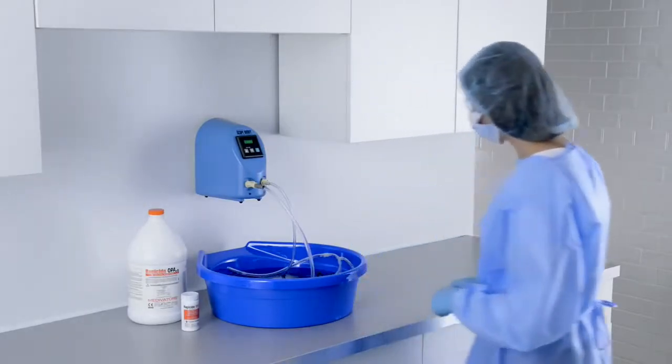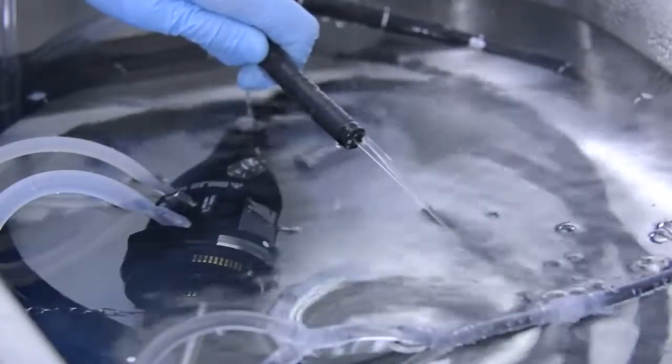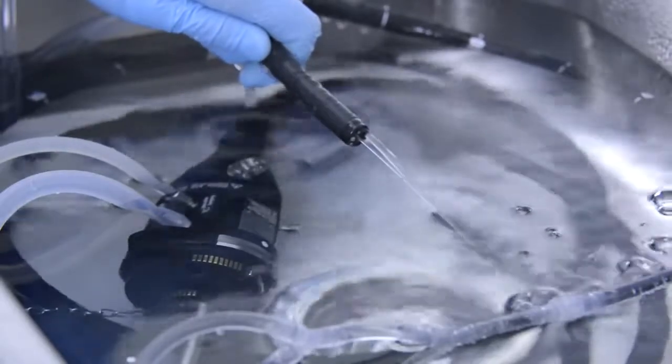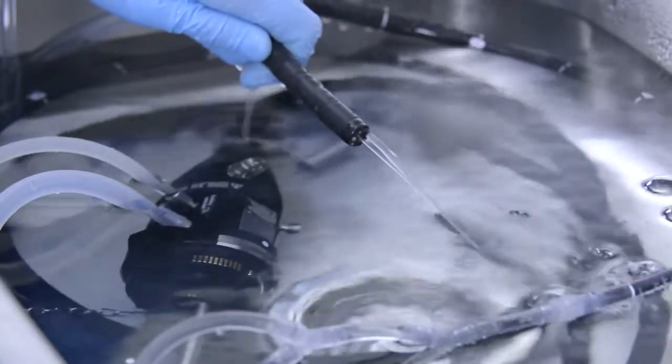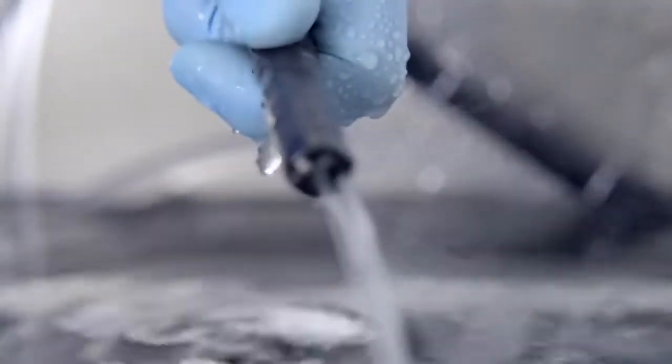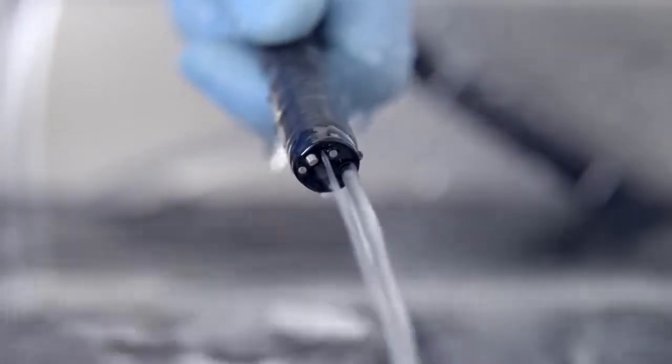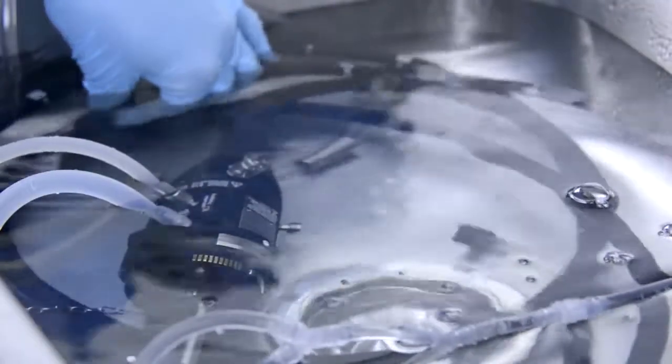Use ScopeBuddy to assist with rinsing and eliminate the labor-intensive syringing of endoscope channels. The continuous, timed fluid delivery ensures consistent, repeatable results, while the hands-free application reduces muscle fatigue.